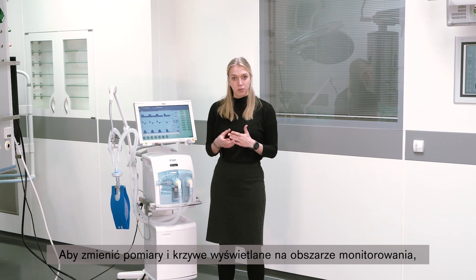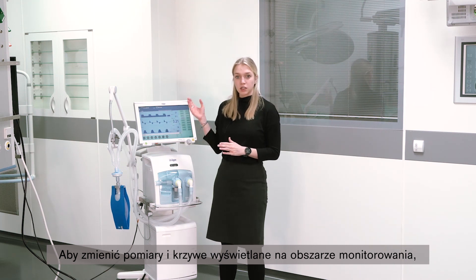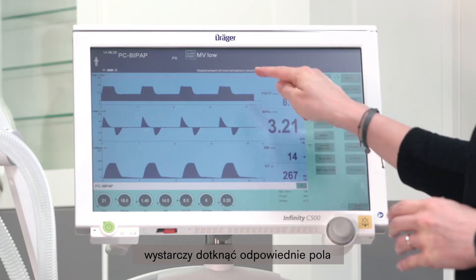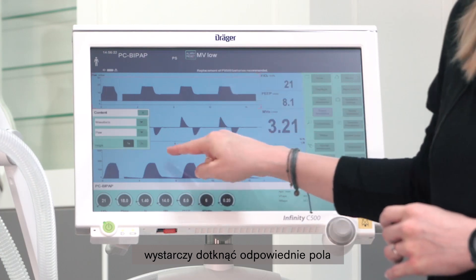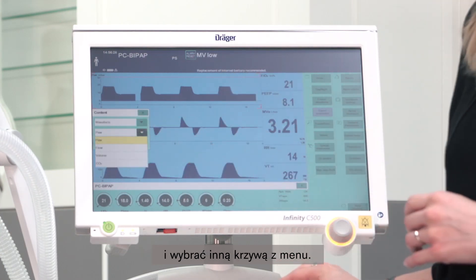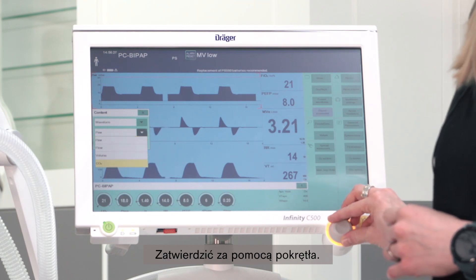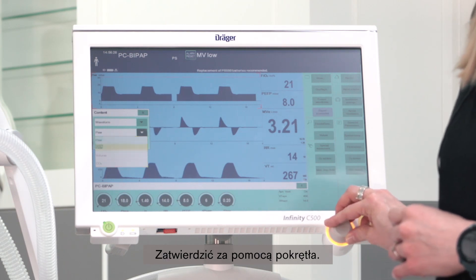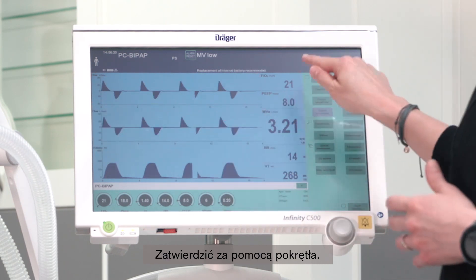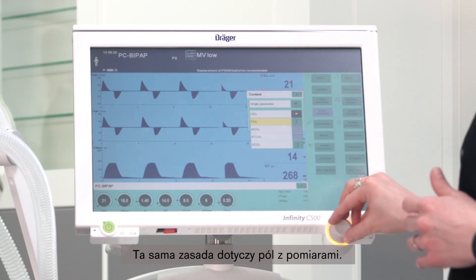If you want to change the measurements and waveforms displayed in your monitoring area, you can simply select the respective fields and choose a different waveform from the menu. Confirm by pressing the rotary knob. The same philosophy applies to the measurement boxes.